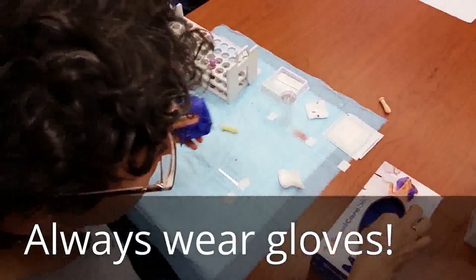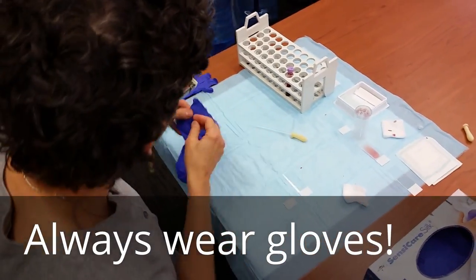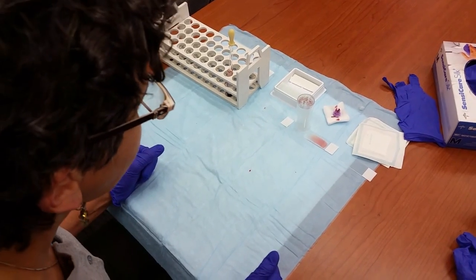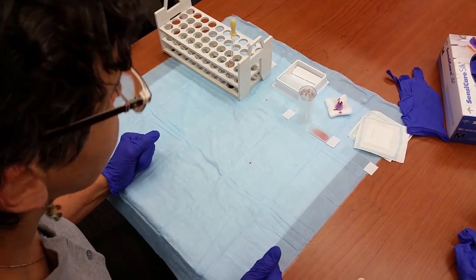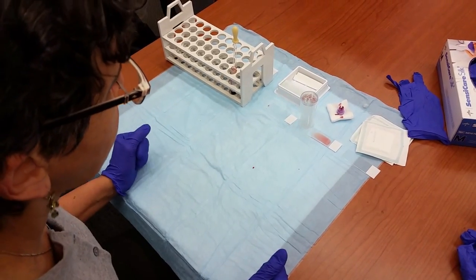Please make sure to always wear gloves when handling patient specimens. The view of a well-smeared, well-stained peripheral blood specimen is critical to the evaluation of patients with hematologic disorders.